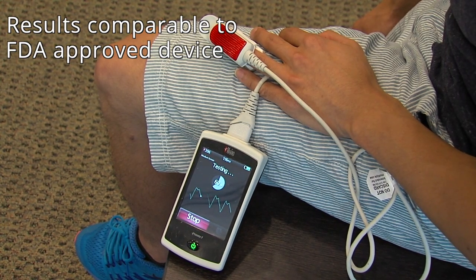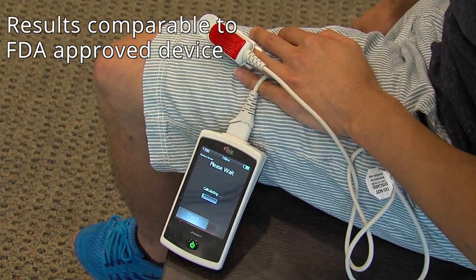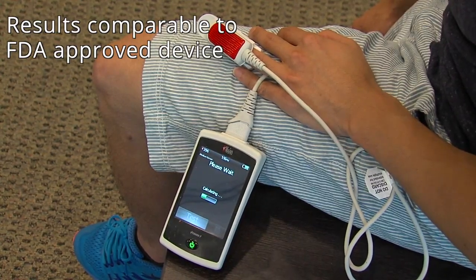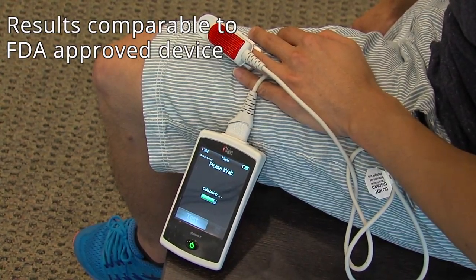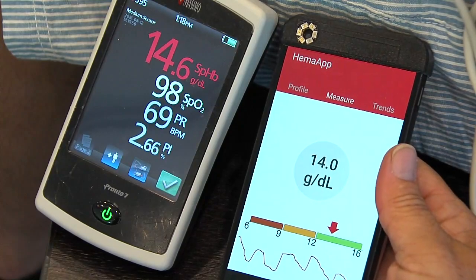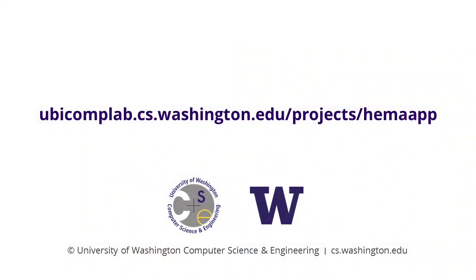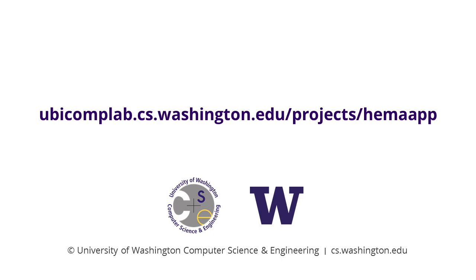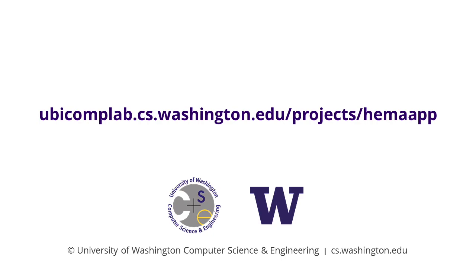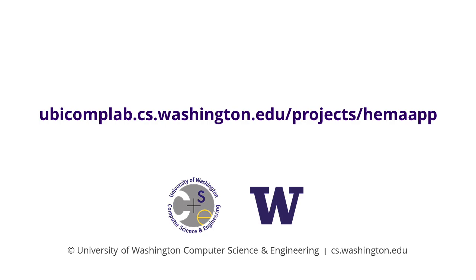In the same clinical study, we compared our results to an FDA-approved noninvasive hemoglobin measurement system and found that our system performance was comparable. The biggest difference is we can use a smartphone's camera to do all of this. HemaApp is a step towards providing an inexpensive and safe way to help anemic patients manage their conditions in a more streamlined and informed way, all without having to draw blood.